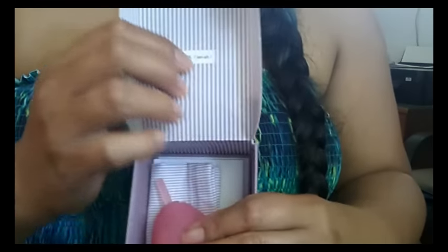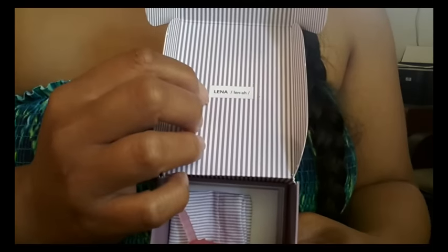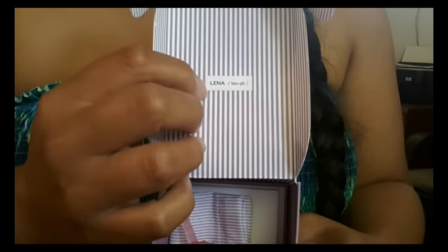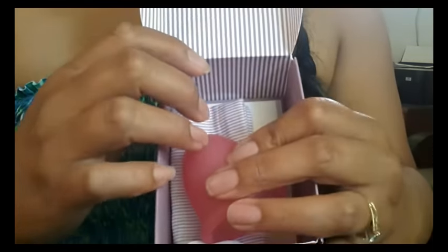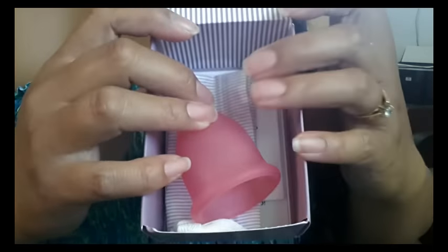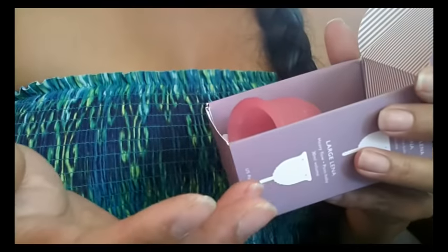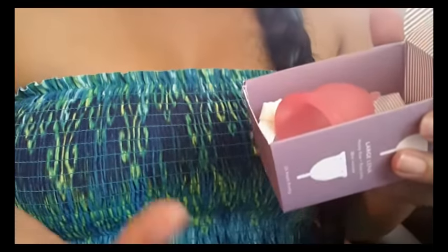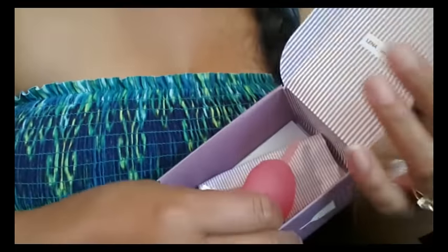Opening the box here, they do have how to pronounce their name. Before I saw Bree's video I was pronouncing it incorrectly — so "Lena" is the way that you pronounce it. I wish some of these other cups actually came with that information, because like the Juju cup, you can call it Juju or Juju and I don't know which one it is.